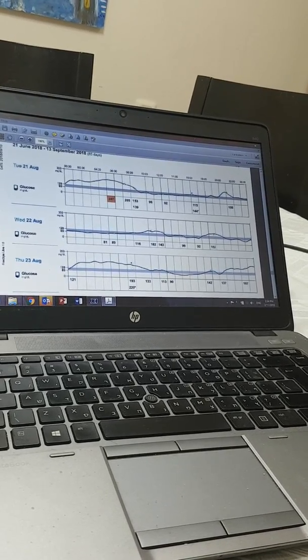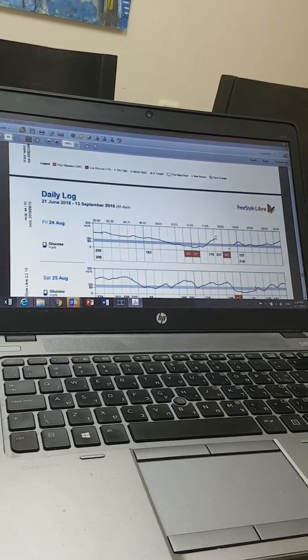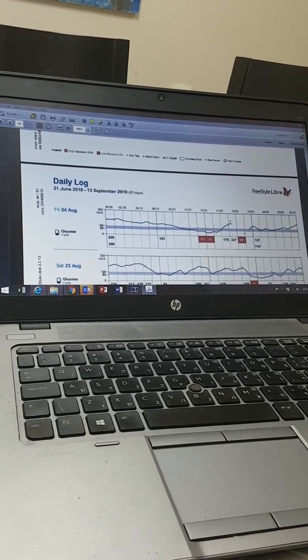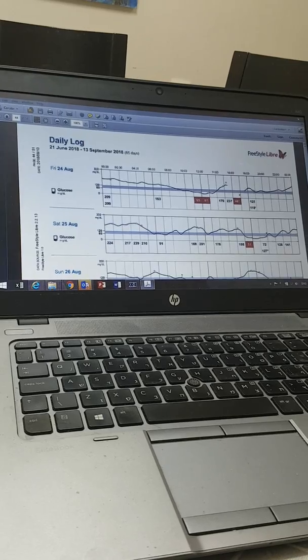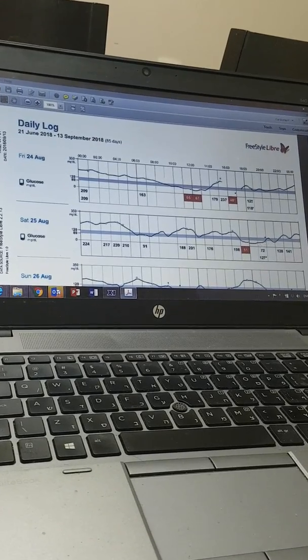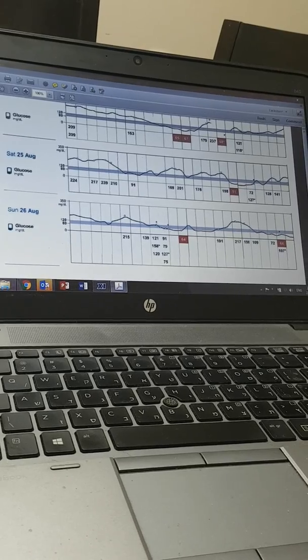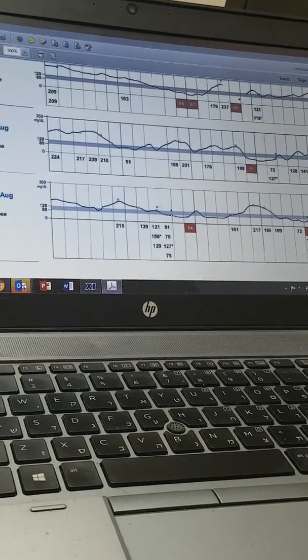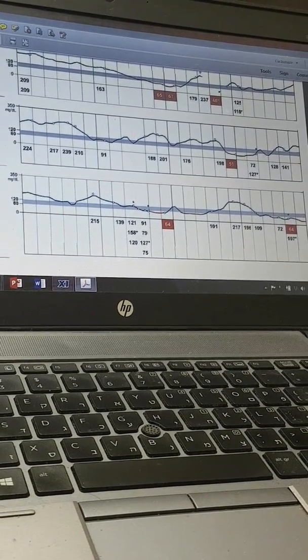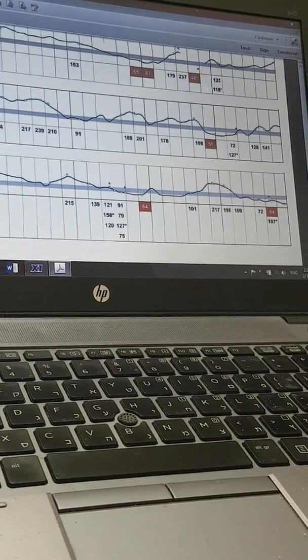Here I changed the sensor, and you see that initially it's really okay: 125 from the sensor and 118 from the finger. But then look what starts happening. Here it's 72 versus 127. One may say it's because the sugar is changing rapidly, but look — here it's going slowly and the sensor says 121 while the blood is 158. Here, it's pretty flat, yet the sensor reads 91 or 79 while the finger gives 127. Already a nice difference — and here it's 64 versus 107.